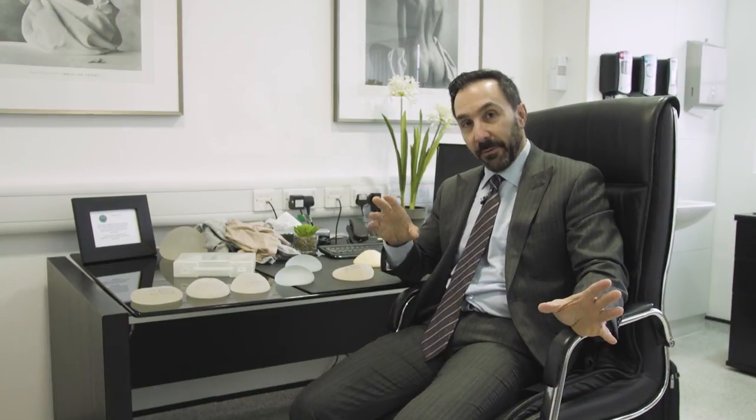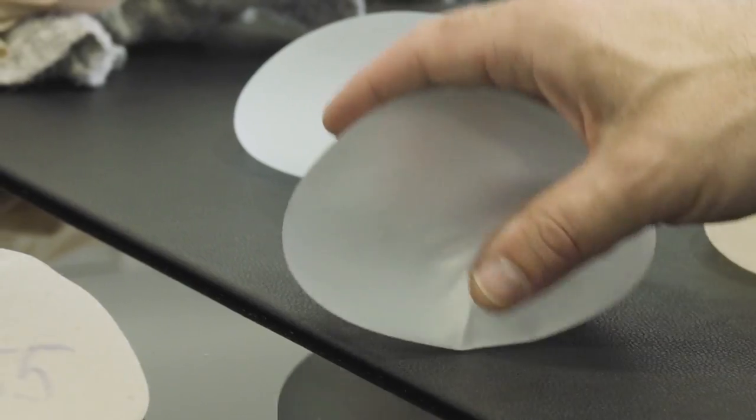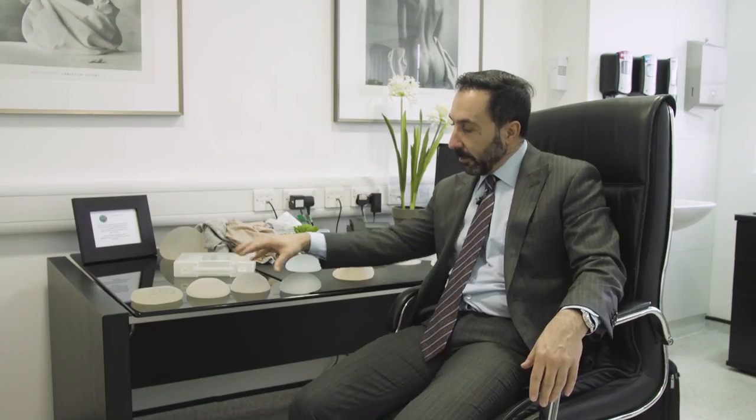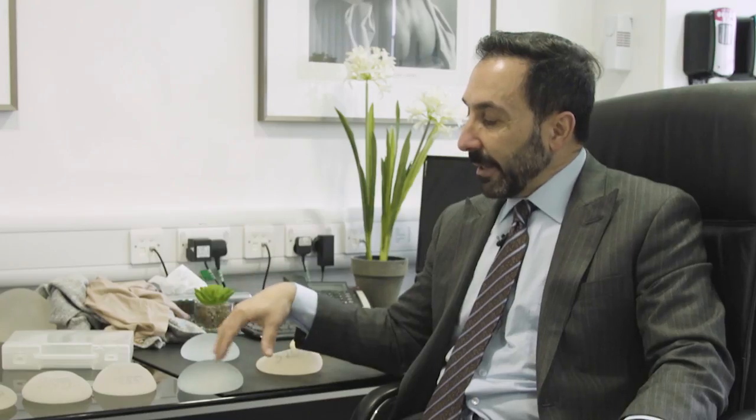Traditionally silicone implants have always been round. Now, whenever we talk about the shape of an implant, what we're effectively referring to is what it looks like when you actually lay it down on the table like this. If you look at these implants, you'll see they've generally got a round look. That doesn't necessarily mean what they look like when you stand them up, but when on the table they're round.